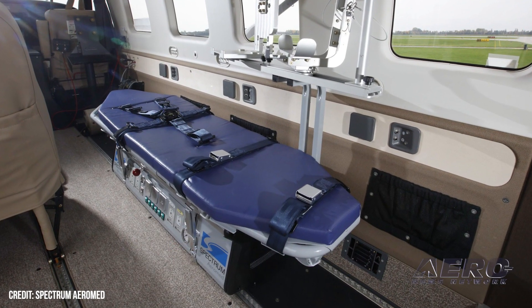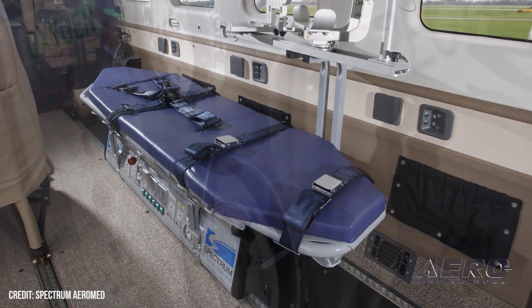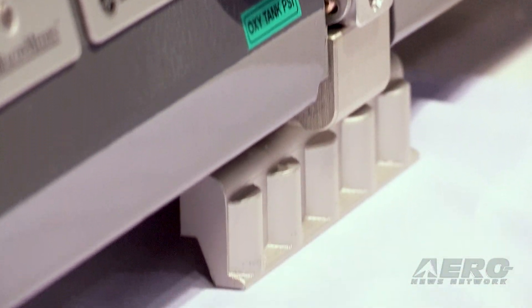It's all right in front of them without any tool application. An easy fit gives them more adjustability within the aircraft to fine-tune it to their interior, and by doing so we've minimized our footprint in the aircraft — it gives them more room.